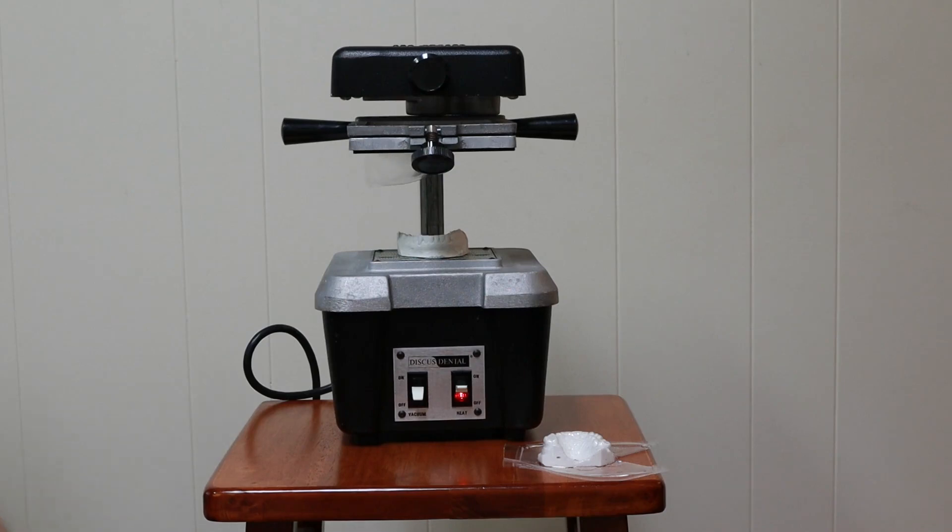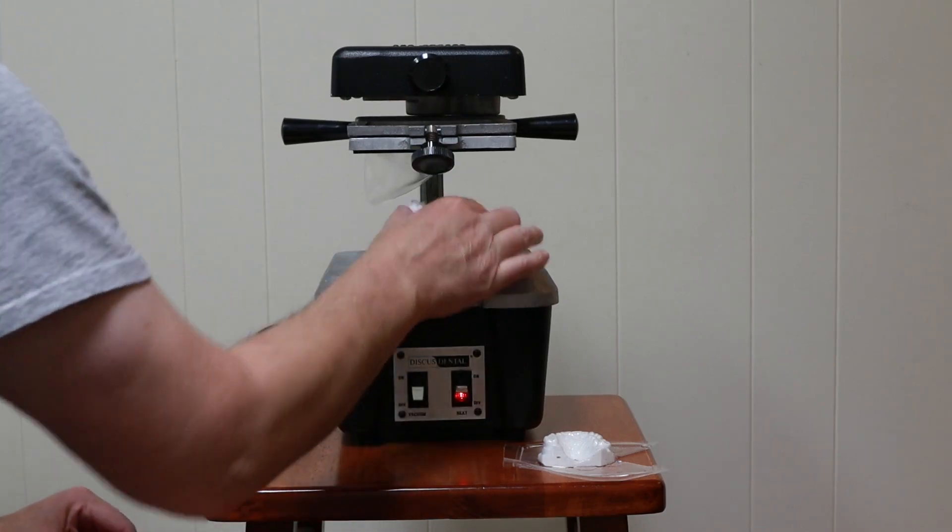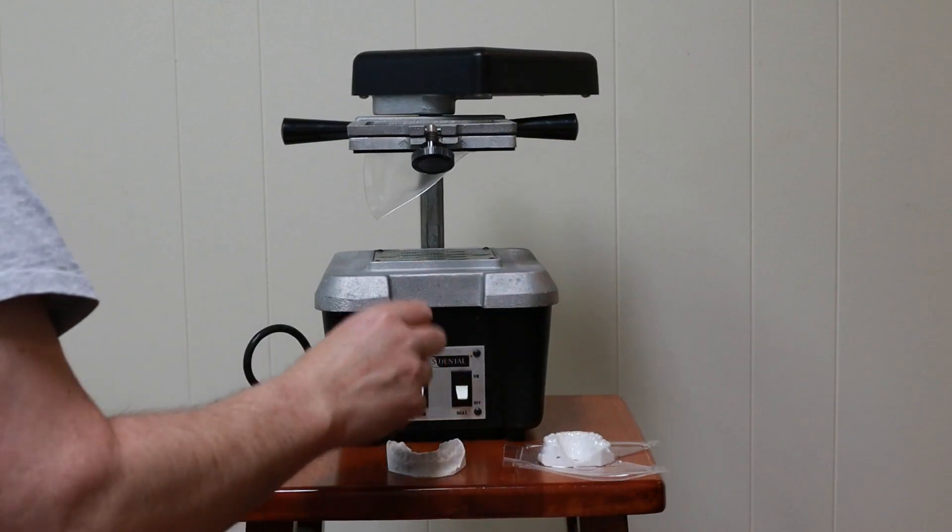Starting to droop. It slid out of the heater. Let's abort that one.